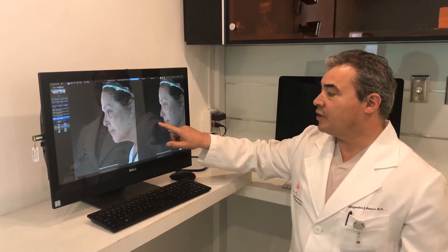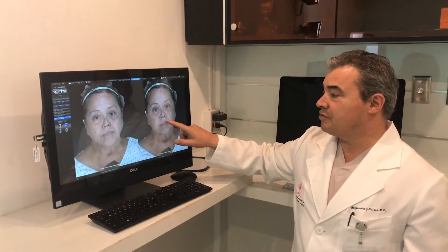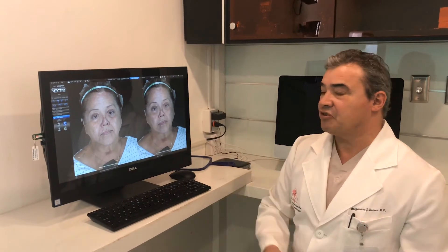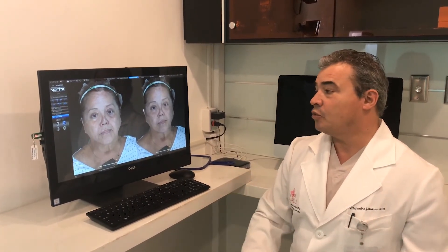So we can modify and adjust the images so that patients understand more specifically what they can expect from the surgery.